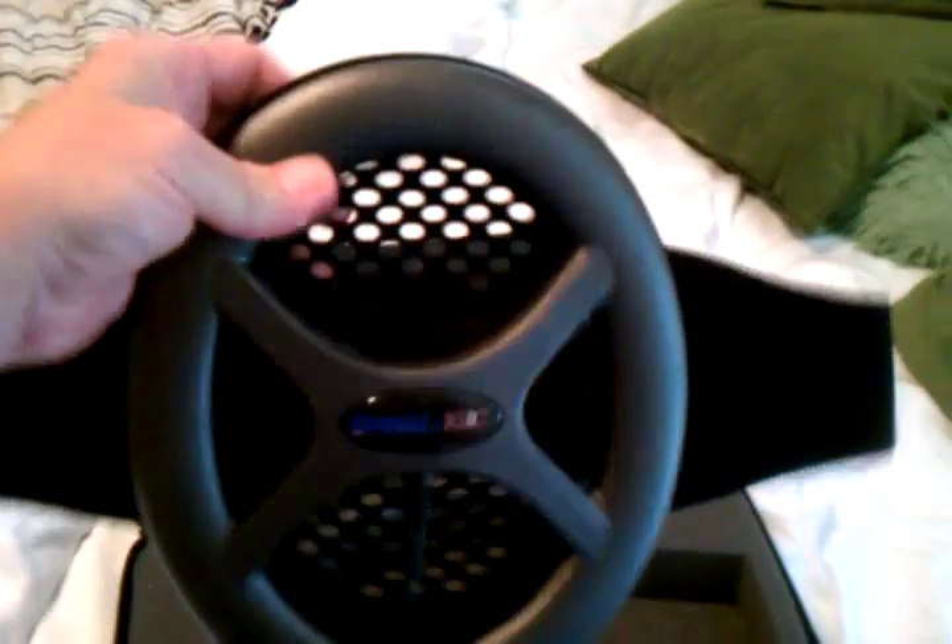What it is, is you've got this disc. This one is for the back. I had one once before that was a leg one, which looked very similar except it was like a half circle so it went over my leg. But this one's flat. What you do is take this and stick it on the back of your neck.